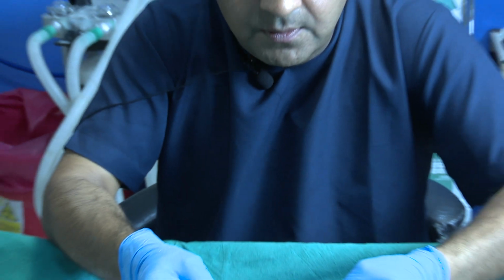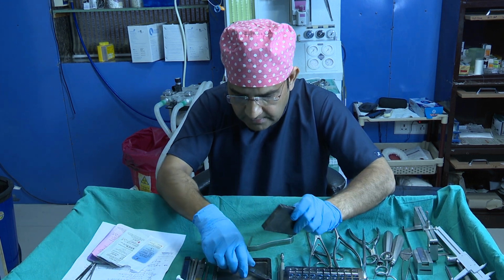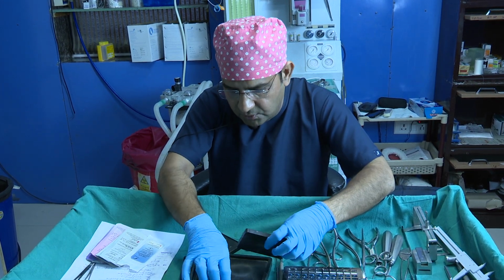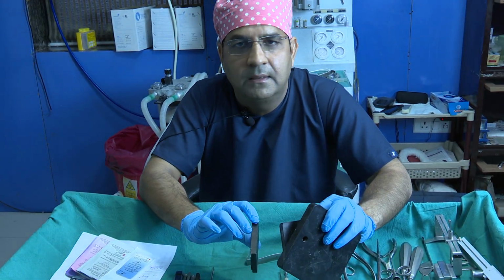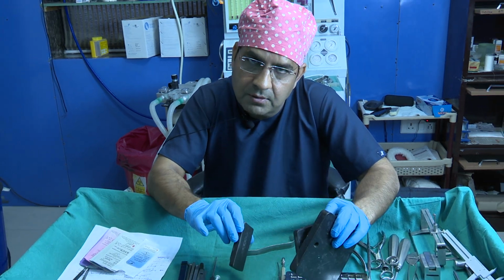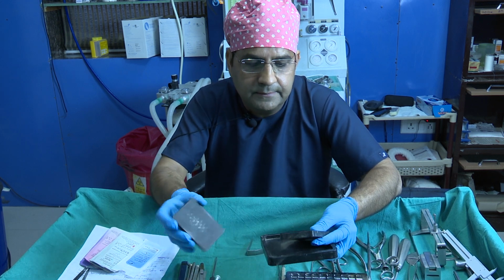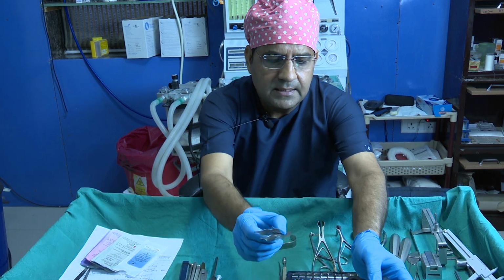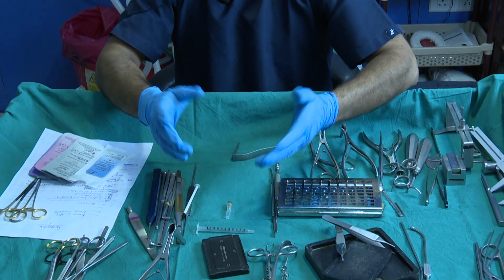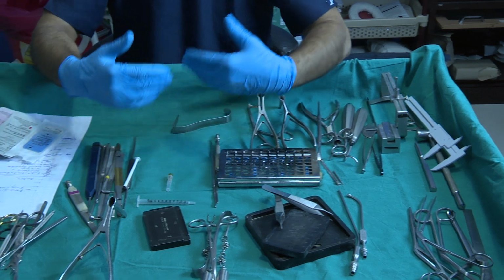So you can easily make the ideal dimension of your graft, according to your ideal width and length. So these three, I think you should have. These are the basic instruments, like the scissors, the osteotomes, the hump rasper, and these blocks. And these forceps are the basic instruments, and I think for septoplasty you have the basic instruments. Now we have some advanced instruments.